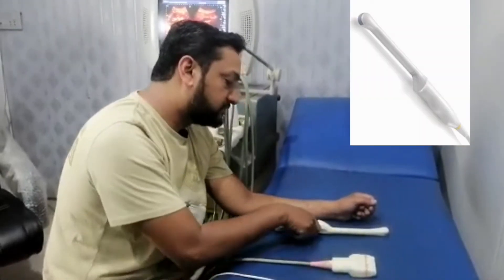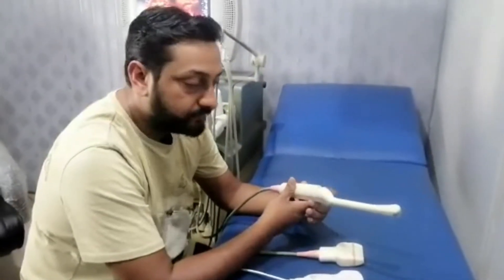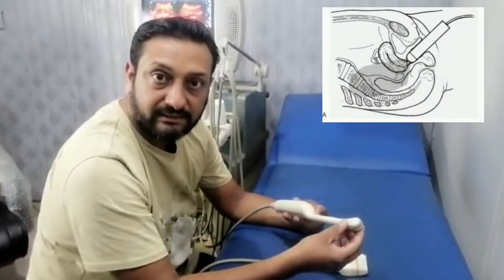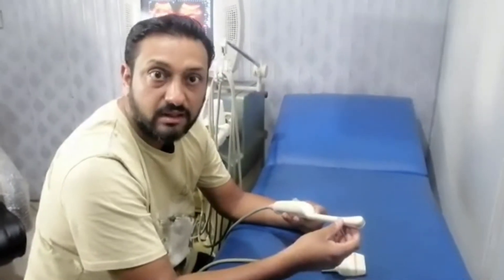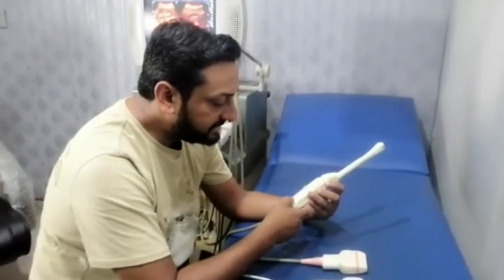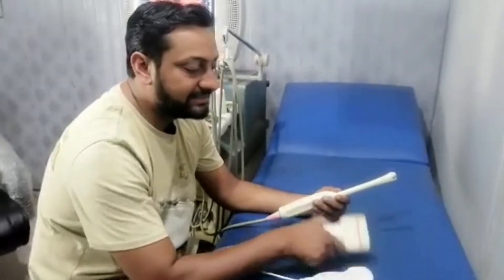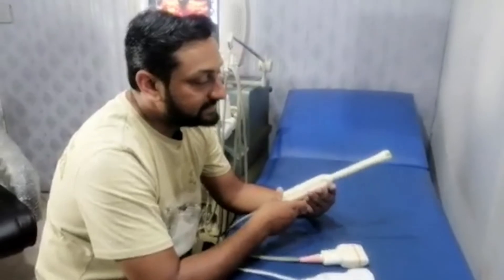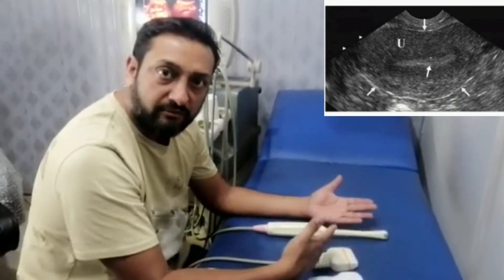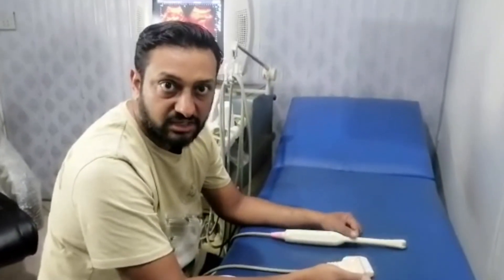Next comes the transvaginal probe. This is an endocavitary probe and it is used for transvaginal ultrasound. For this probe we have to use specific precautions — we have to make sure that it is sterile for every patient and we have to use a separate condom when we use it on our patient. Its frequency range is 6 MHz, falling between the 3.5 MHz convex probe and the 8 MHz linear probe. Because it is an endocavitary probe, we do not need very deep penetration to see the pelvic structures.